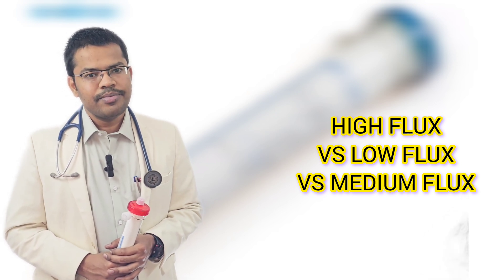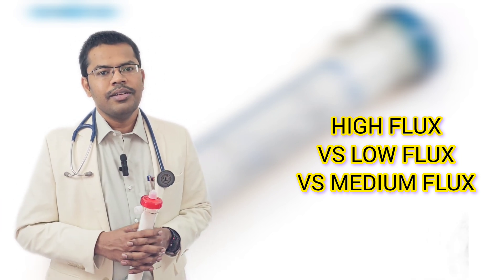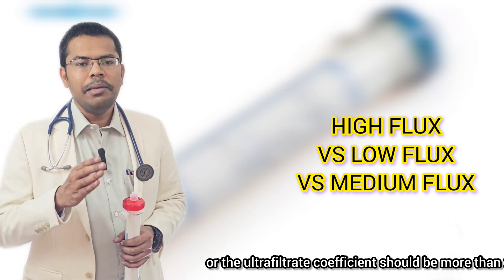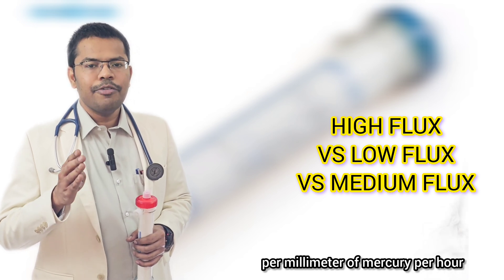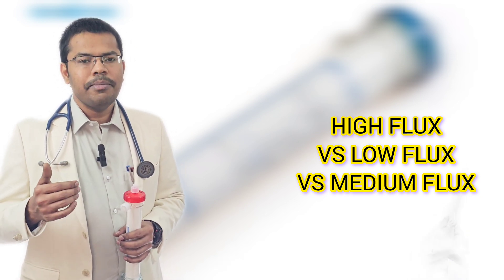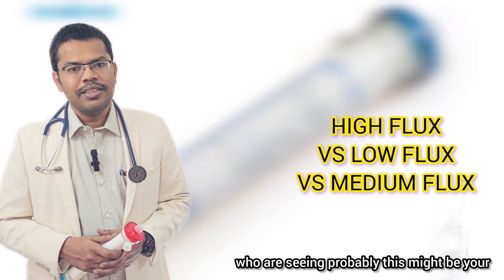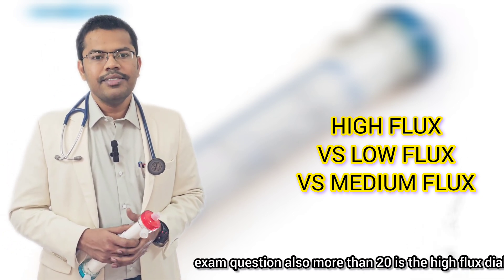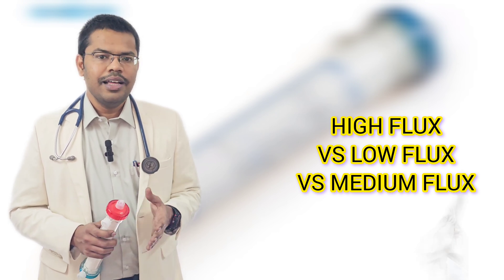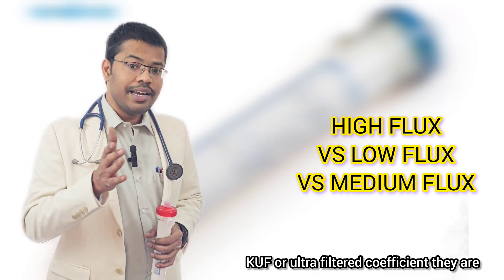If the pore size is bigger, obviously more water will move to the dialysate compartment; if the pore size is small, less water moves. To classify a dialyzer as high flux, the KUF or ultrafiltration coefficient should be more than 20 ml per millimeter of mercury per hour. This 20 is the cutoff — more than 20 is high flux. Less than 10 KUF is labeled as low flux dialyzer.